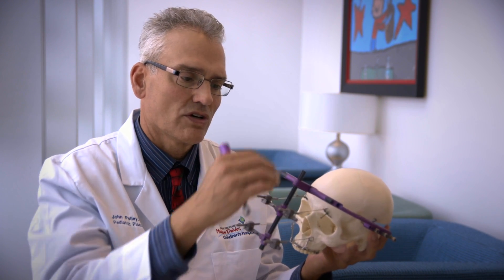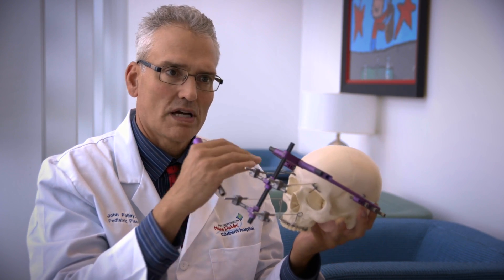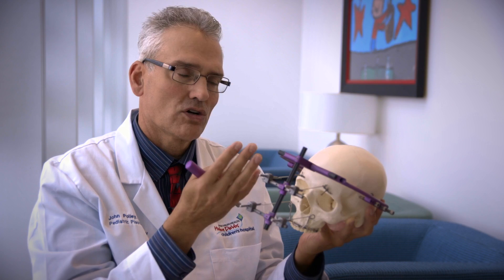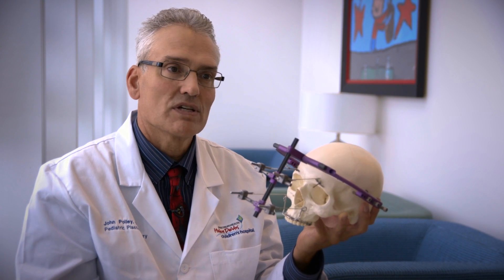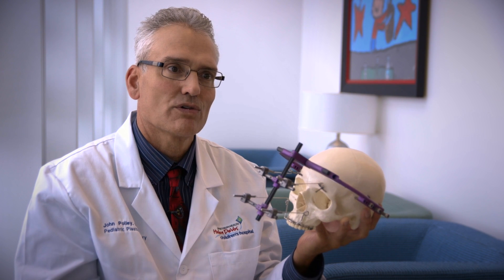The beauty of this system is that it's totally adjustable — we can move it up and down, sideways, or tilt it. Depending on what level of distraction we want and where we want to move the facial bones — vertical position, horizontal position, or yaw position from side to side — we can make all those adjustments and then have the parents perform the distraction themselves. Most patients typically require about 15 to 20 millimeters of distraction. At a millimeter per day, that's about 15 to 20 days, so in roughly two to a few weeks, parents can actually transform the faces of their own children right before their very eyes.